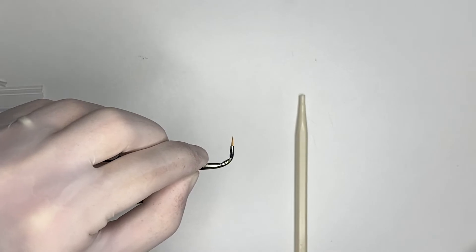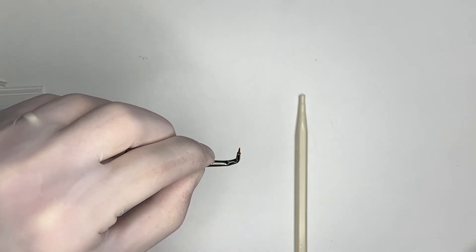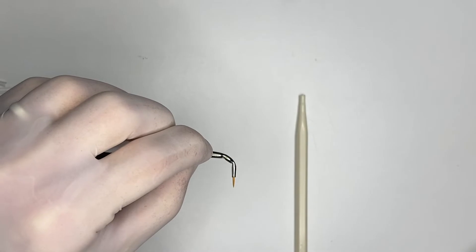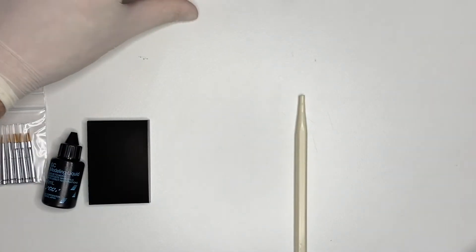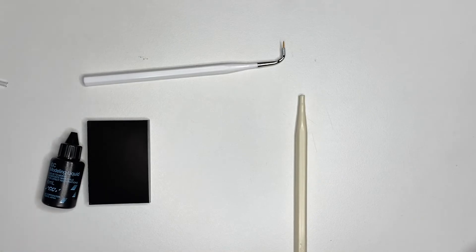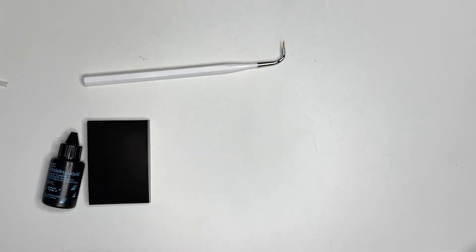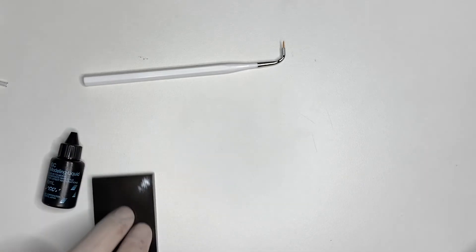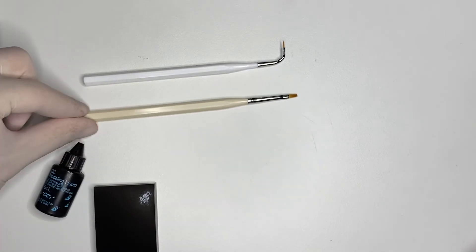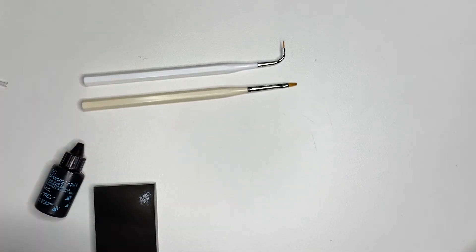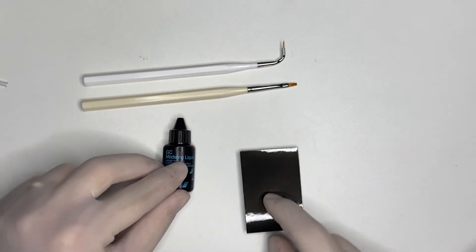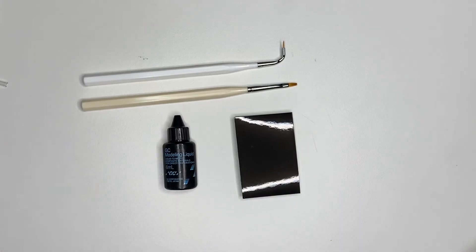The round brush is the one that I prefer to use for the side teeth, for molars. And I only use the wide-tipped brush for the anterior teeth. These two, along with resin, should be present in most offices where composites are made.